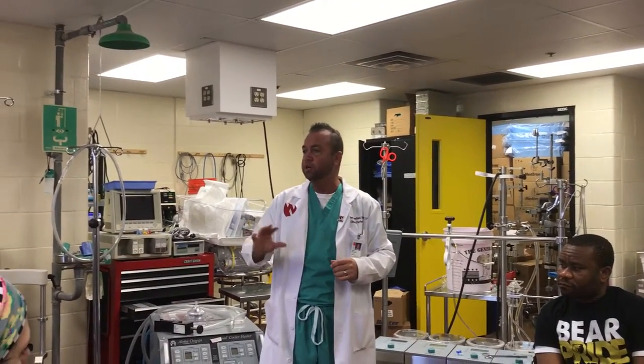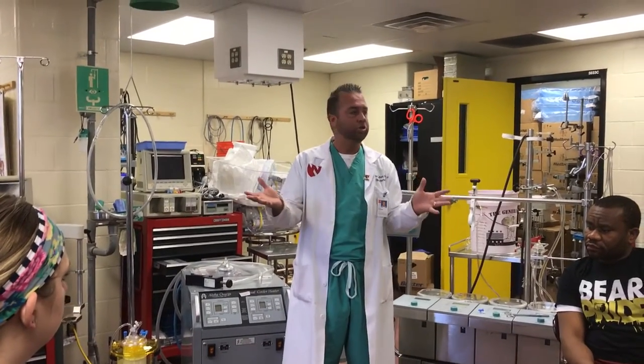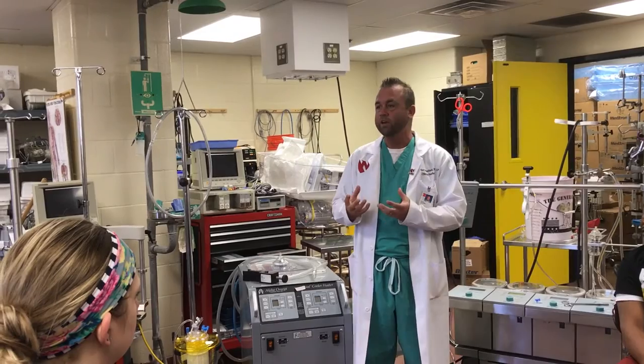We establish parameters — oxygen, sweep, heater-cooler on — and slowly establish venous drainage. Going on with the roller pump, we feel the tubing; with the centrifugal pump, we slowly go on making sure there are enough RPMs to generate forward flow. We turn the purge line on, come up to full flow, and simultaneously turn on the level detector, bubble detector, and timer — creating a seamless transition.